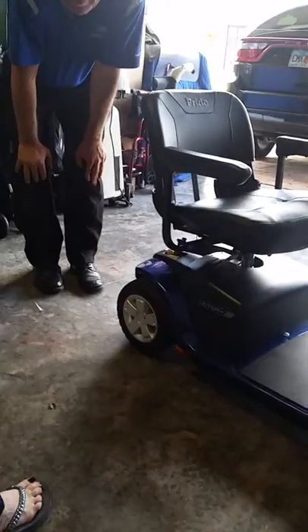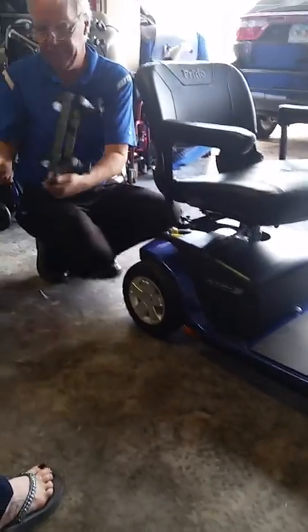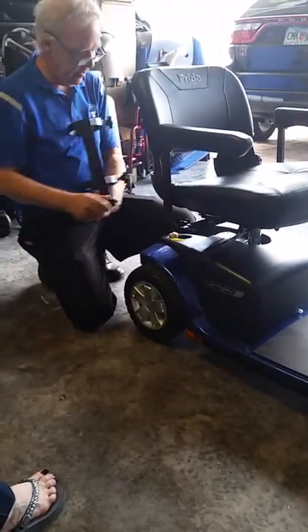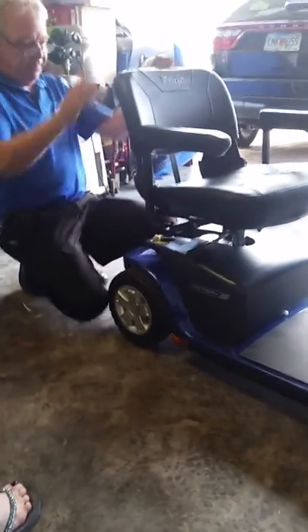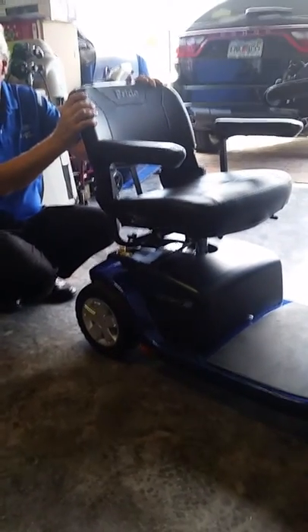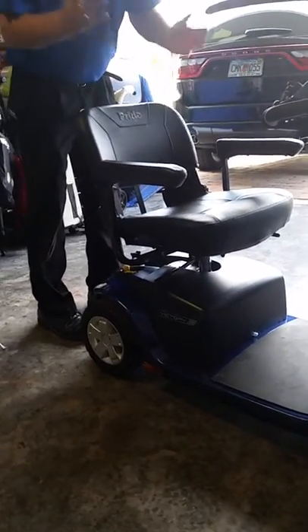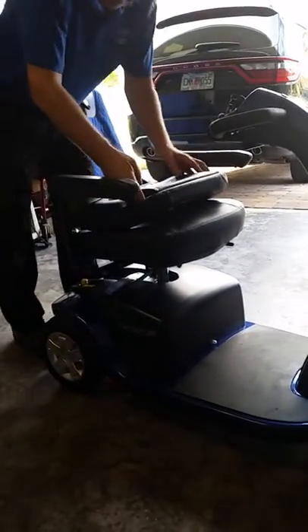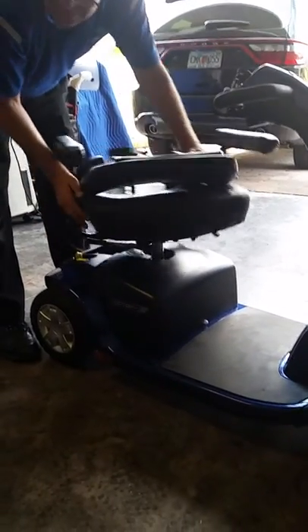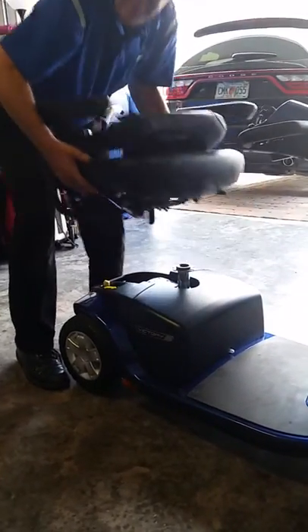You can take the holder on this thing or leave it off — I leave it on when I take it apart, I can take it off. Otherwise there's just a little kind of skin, like a trailer. This is nothing more than a bass boat cover, like you'd get at Walmart and put on a boat. If he ever wants a camouflage cover, you can get him one. The back folds down, this handle right here is your swivel handle — you can turn the seat off, pull up and grab the whole seat, and it pulls off.